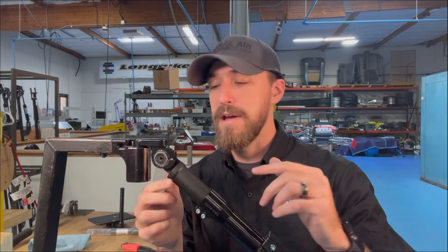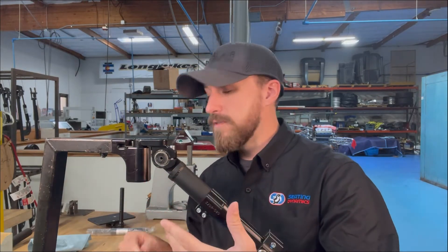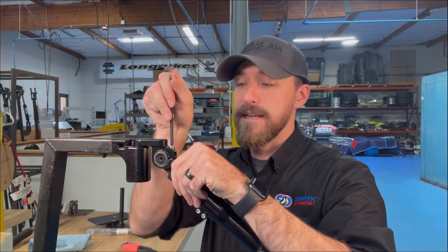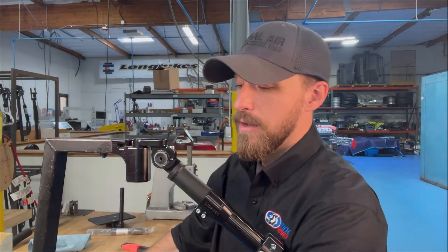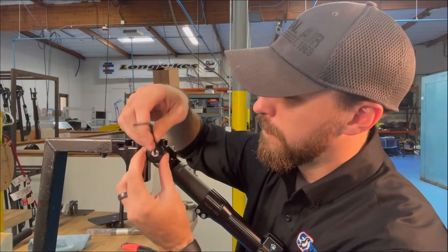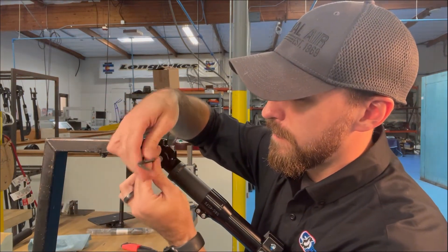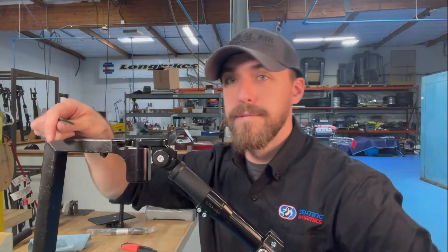This is a racing industry spline joint — it's very strong but also lets you set it at just about any angle you need. Once you've got that angle, grab your five millimeter allen key again, press it firmly in place, tighten that up, replace your dust cover and screw, and you're done.